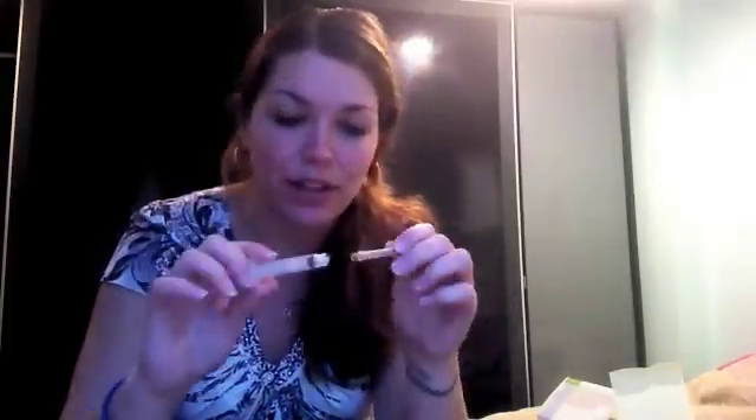So after two beeps, we have to fill the Omnipod with insulin and hit next. In order to do that, you have to open the box. This one hasn't been used — there's still a tab on it so that the sticker underneath will stick to my skin. It comes with a needle in two parts; this is just to protect the needle when it's in the packaging, but you screw it together and open it up.